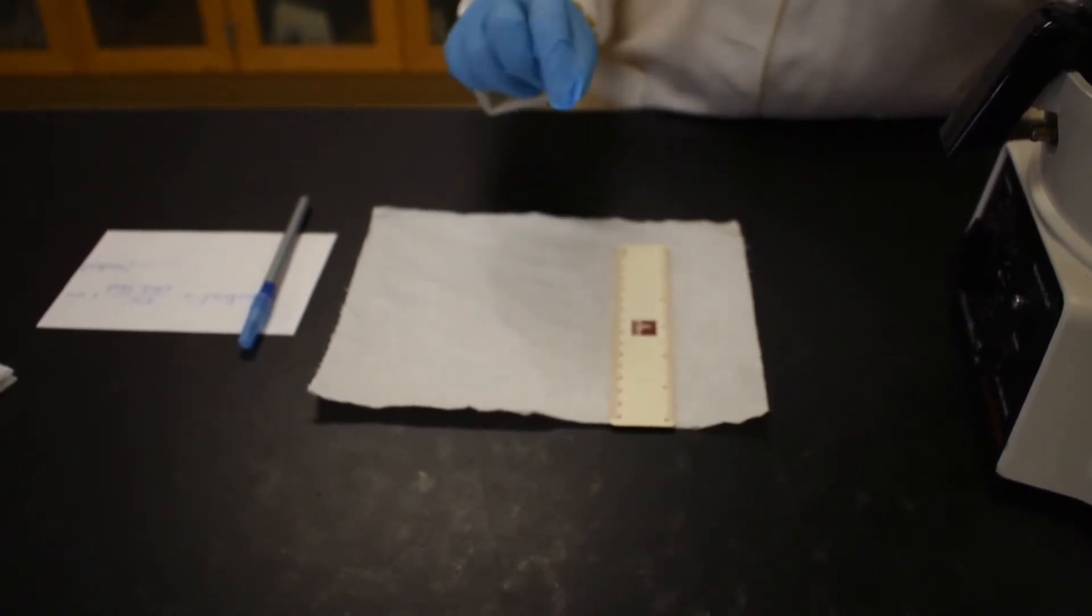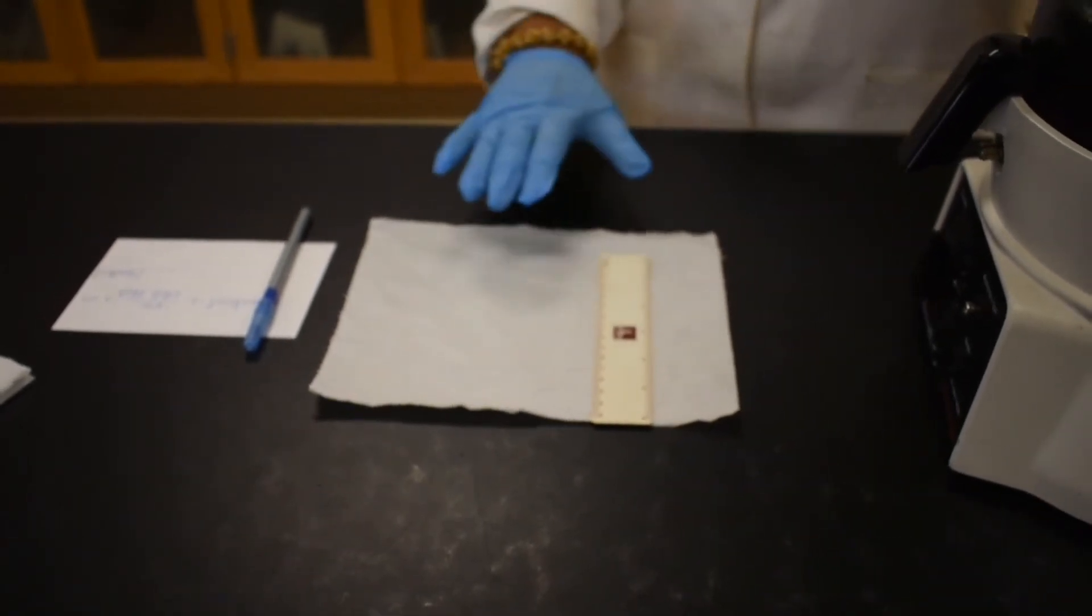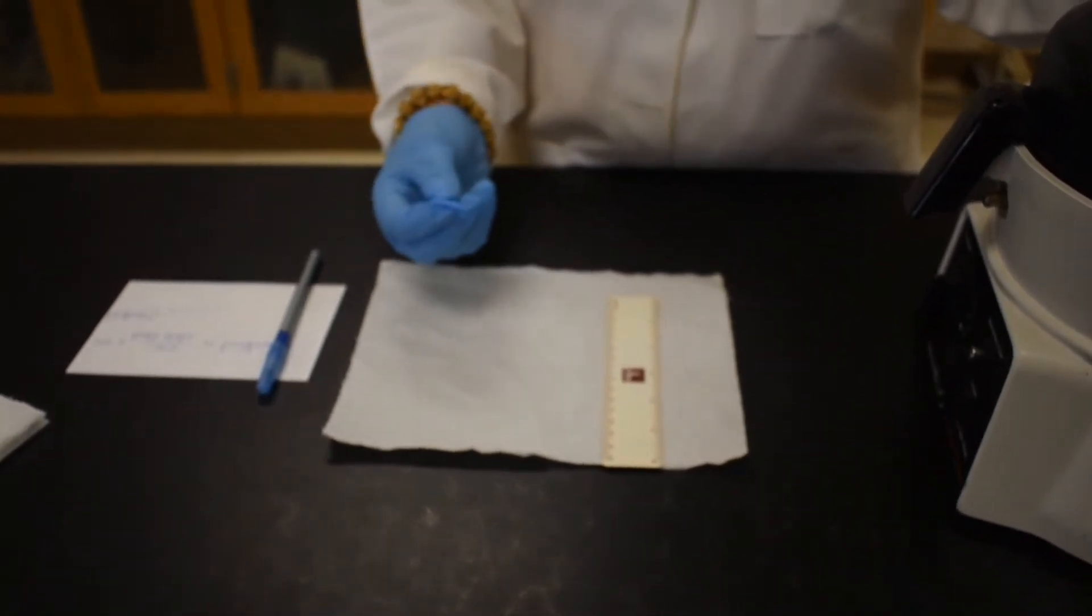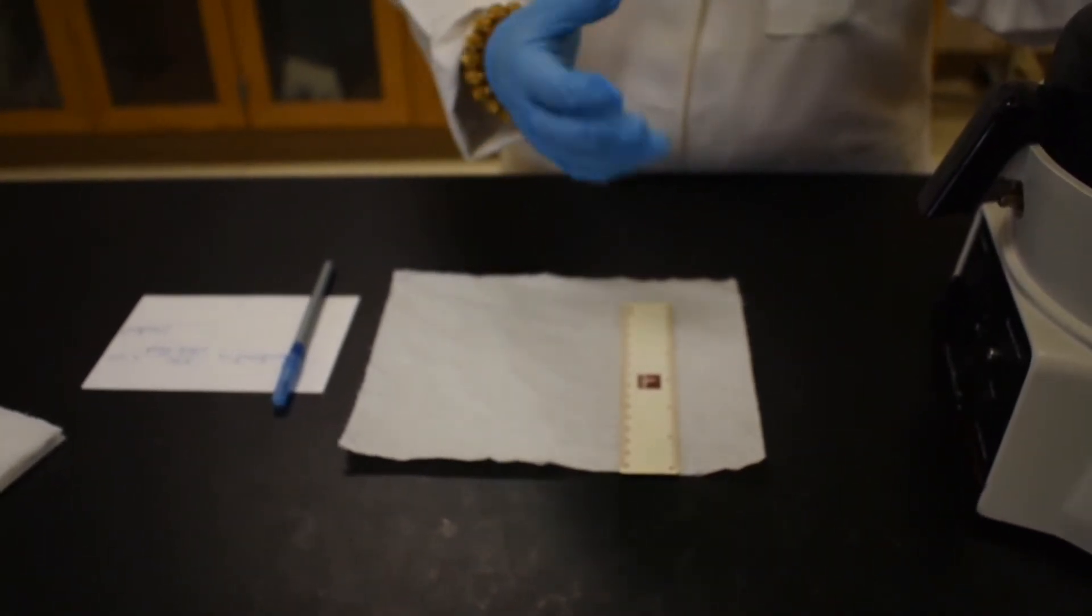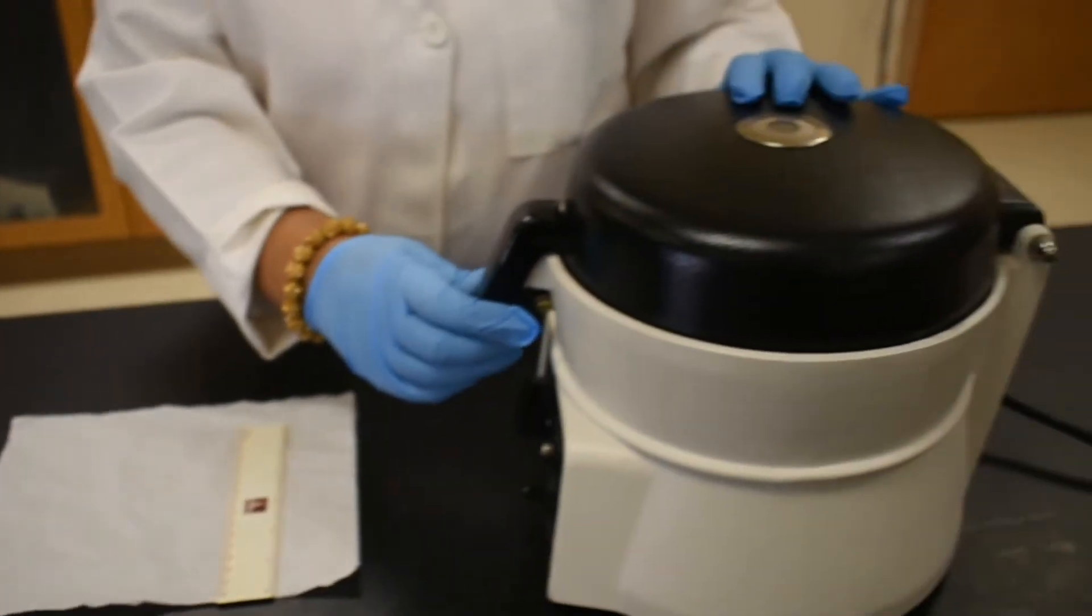We are handling synthetic blood here. But still, again, remember those are biohazard samples. The paper towels and anything else with blood stain were thrown away in the biohazard container. So let's see what happened.